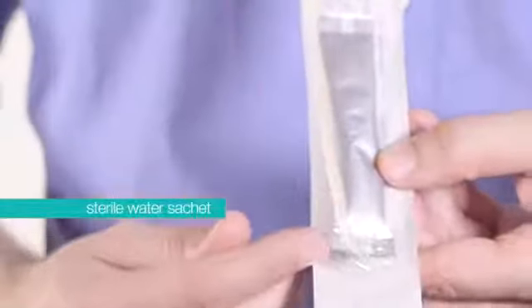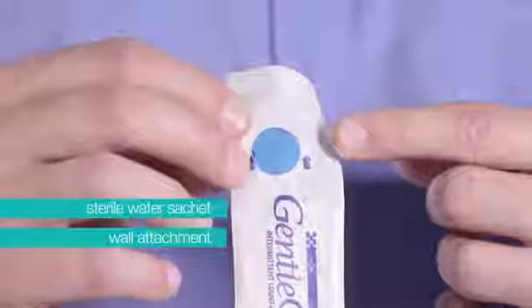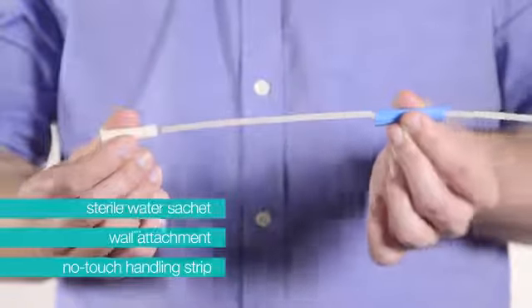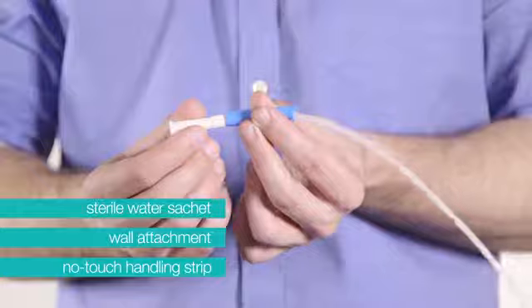Gentle Cath Hydrophilic catheters include a sterile water sachet, wall attachment, and no-touch handling strip to provide a complete start-to-finish experience that removes the need for direct hand contact with the catheter.